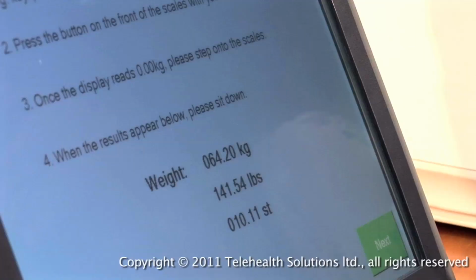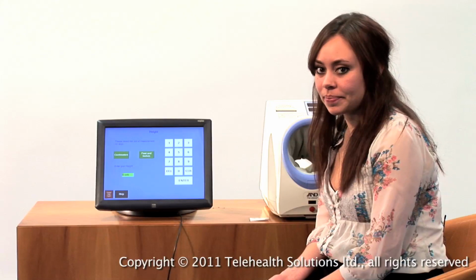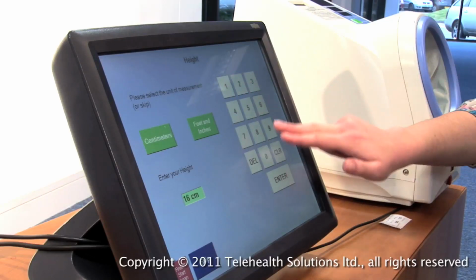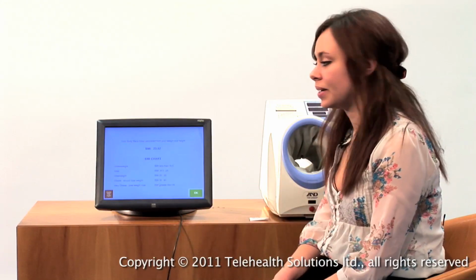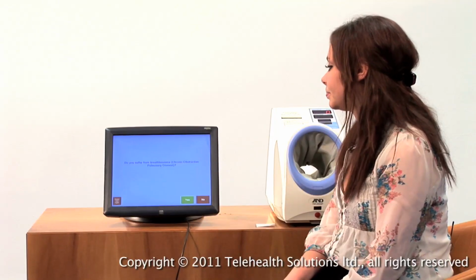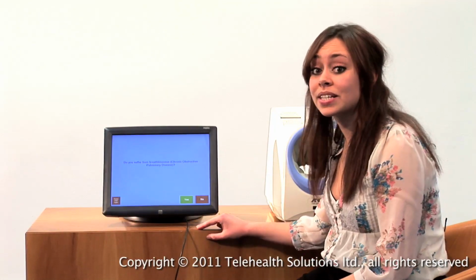The next thing that it will ask you to do is to take your weight. As you can see, the weight is measured in kilograms, pounds, and stone as well. The next thing it will ask you is to measure your height. This can be either done in centimetres or feet and inches. Just enter the figure, and then when complete, press enter. The next screen that comes up is a description of the BMI, whether it's underweight, ideal, overweight, obese, or very obese. Then it asks you a question about whether you suffer from breathlessness, which you just press yes or no to.